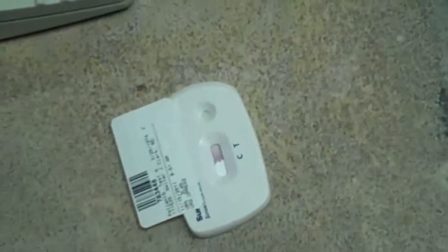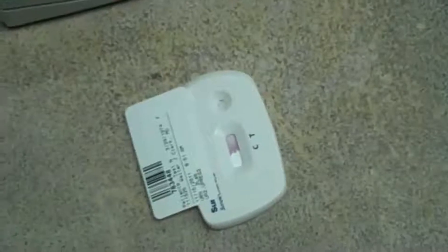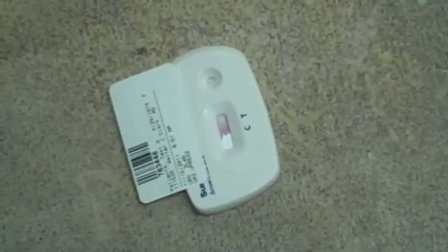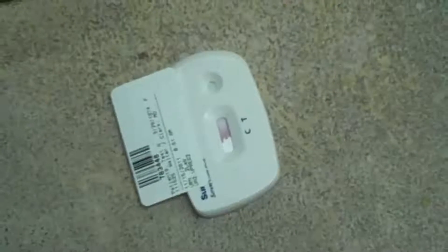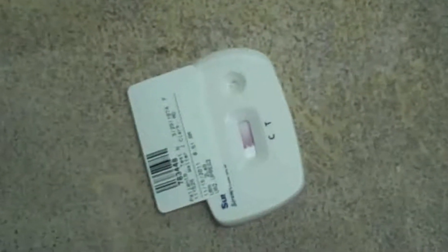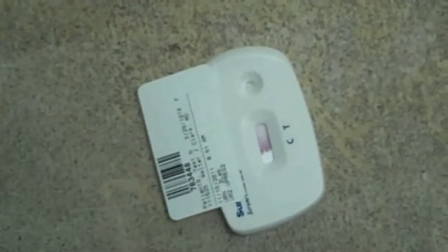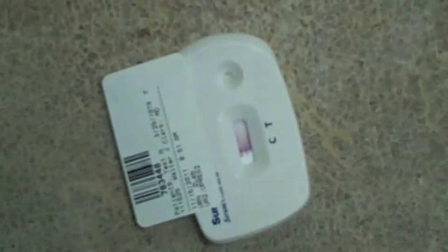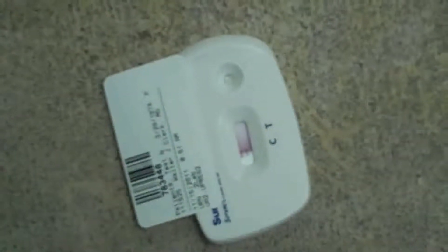It is important that you do not disturb the test kit during the procedure. The procedure consists of a migration of the urine sample from the round well to the testing area. In the testing area you will see a C and a T — the C is the internal control line and the T is the test line.